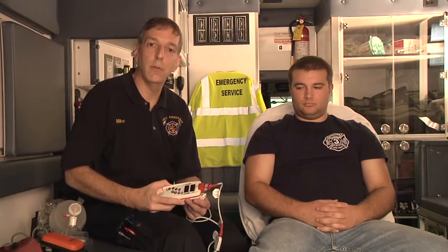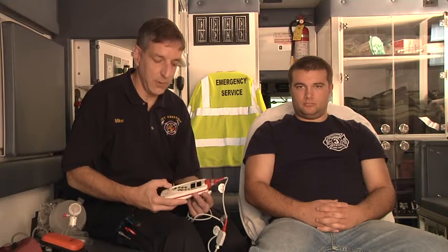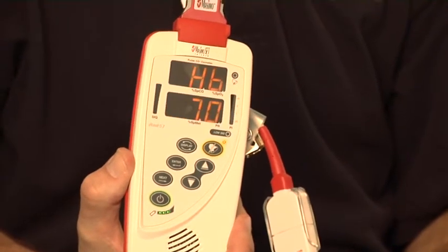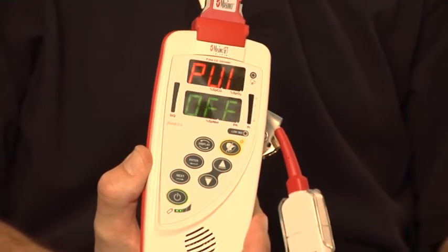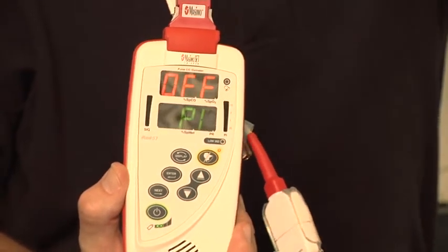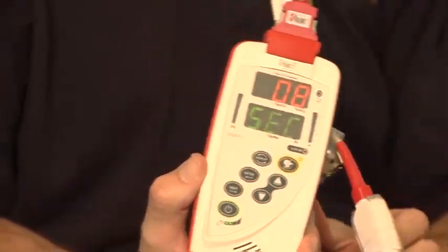The first thing that's an issue is deciding when you actually need to assist ventilations. One of the tools in the new EMS educational standards at all levels of practice is a pulse oximeter. Because we no longer administer oxygen to patients who are saturating at levels above 94%, a pulse oximeter gives us an early warning that a patient is deteriorating.